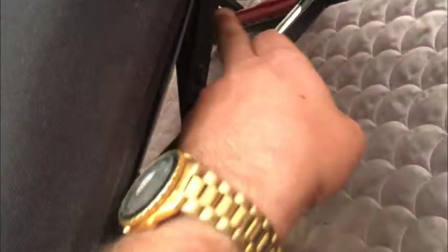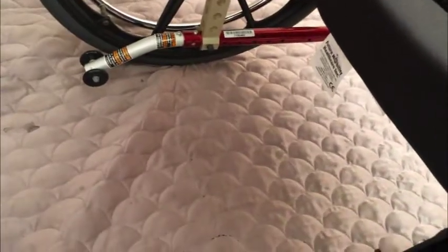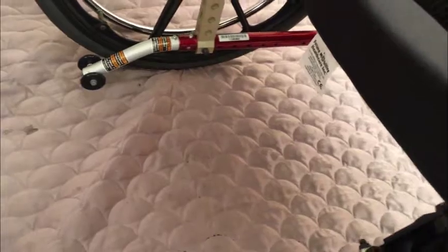As far as the other features, there's a scissor mechanism underneath. If you were to remove this bar here, you could make it a folding chair. But those who know would appreciate having a chair like this as a fixed chair. There are also retainer bars in the back to keep it from flipping when you're moving it around. And of course, there's a nice seatbelt, which is adjustable.